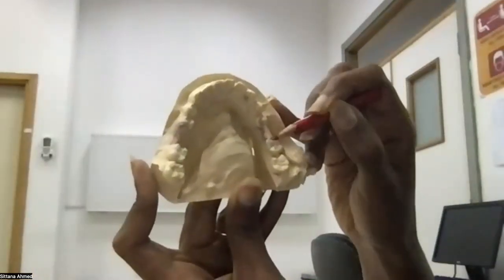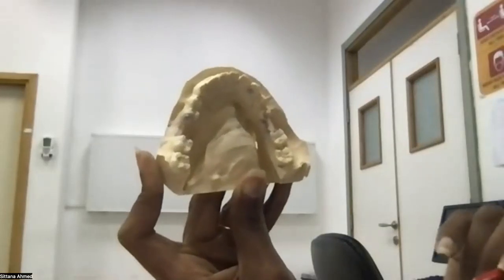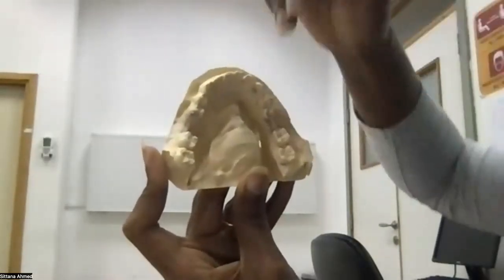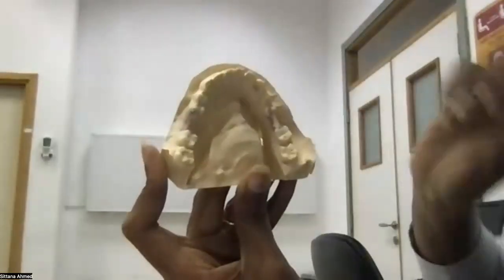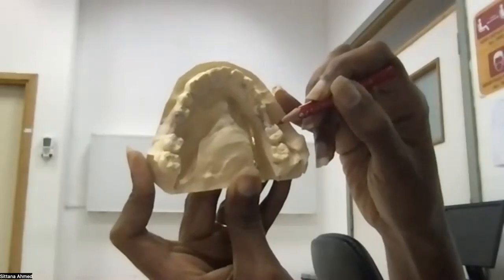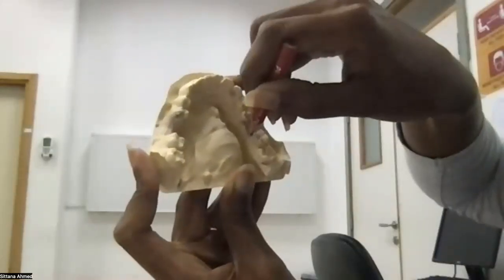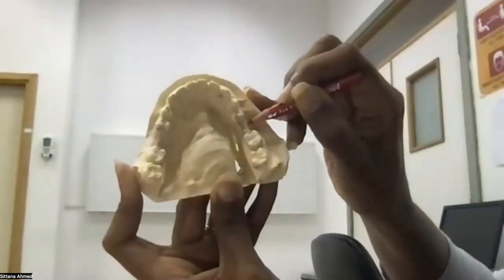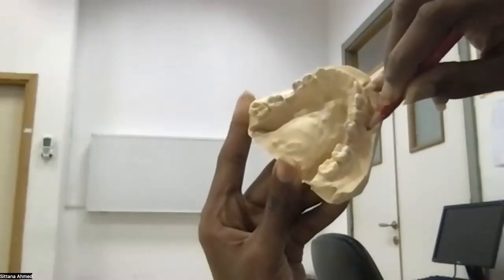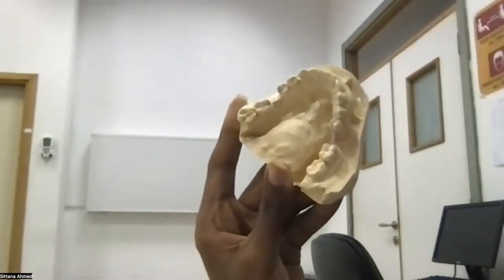Okay, saddle, guide planes, rest, rest, rest, rest. Then retention. I need minimum 1 for each side. More is okay, minimum 1 on each side. So I can put, let's say, this, I can put any clasp. So maybe, for example, here a C clasp, and maybe here an I bar because it's a premolar. But you can see here there is a frenum. It's hitting on it. So on this side, I cannot put an I bar.